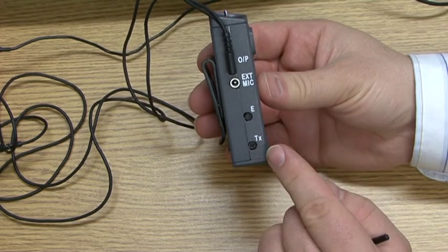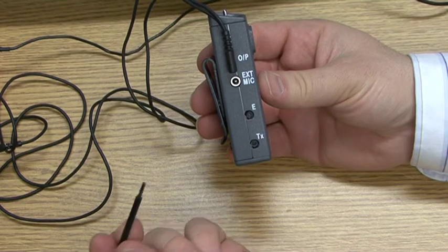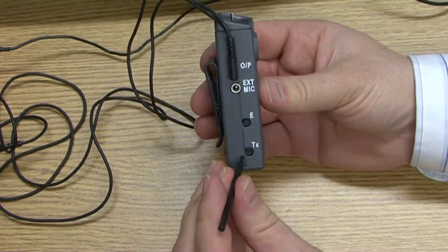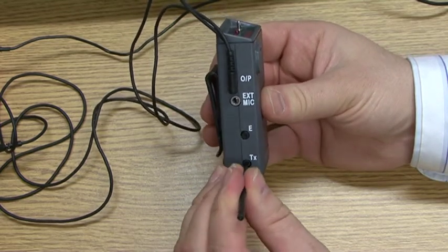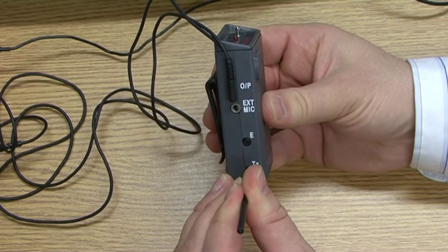Using the manufacturer's adjusting tool, adjust the gain control anti-clockwise to decrease the gain.